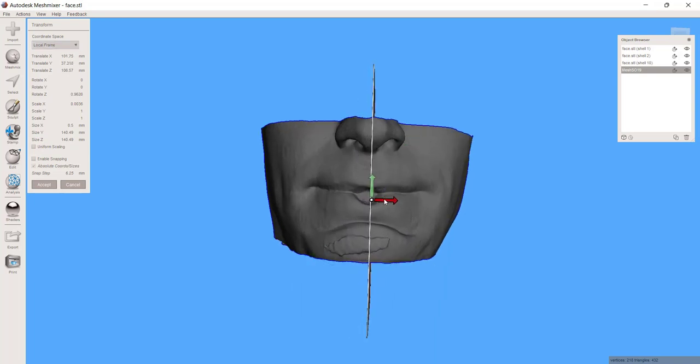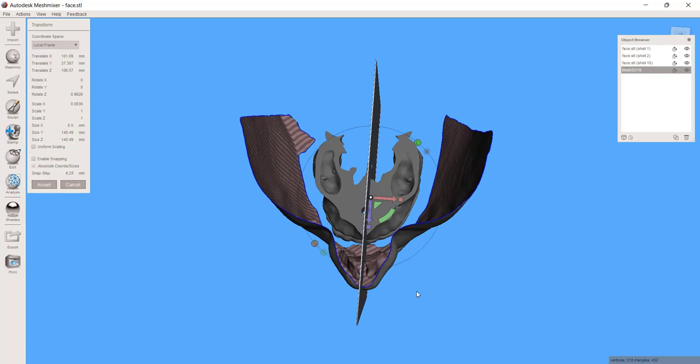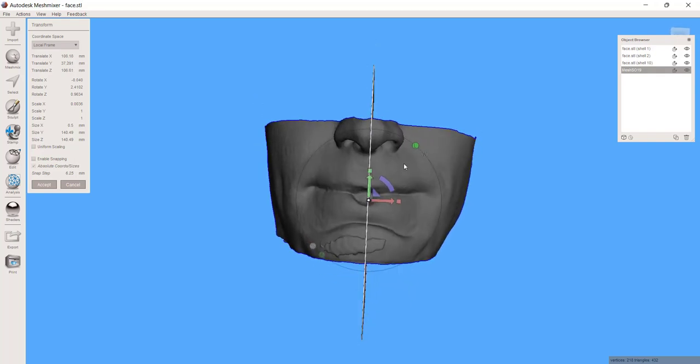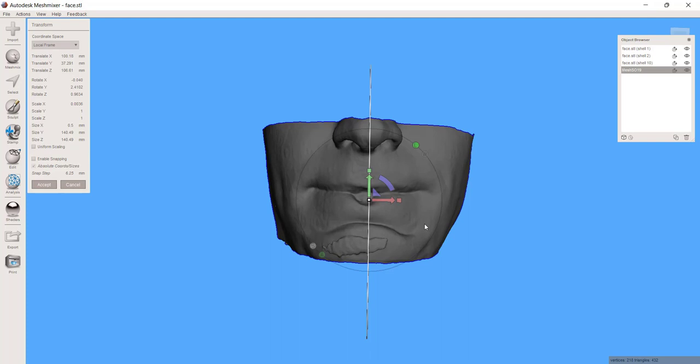I'm going to try to align it right here. If I was doing this without that facial soft tissue, I would be doing it purely on the maxilla. And you can have some discrepancies between the face and, say, where the midline of the maxilla is. So between both of them, I can get a really good idea. I want this, when I look at it, to appear to be going straight through the face. This is a kind of mid-range field of view — it got up to halfway up the nose and part of the chin. It's even better if you can get the full face because now you can see interpupillary lines.